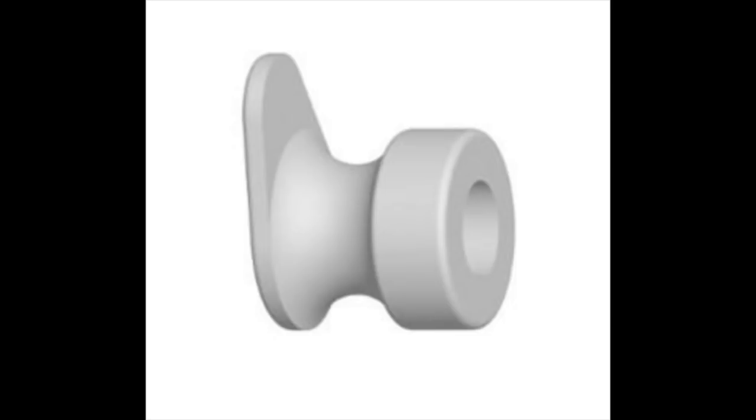This is a little plastic ventilation tube that we use to aerate middle ear spaces. It allows air through that center section there to get into the middle ear space. It's inserted into the ear drum, and we've got a little picture coming up in a second showing what one looks like when it's all inserted.